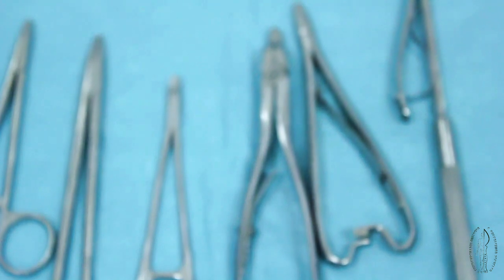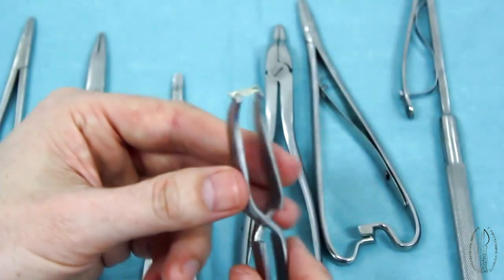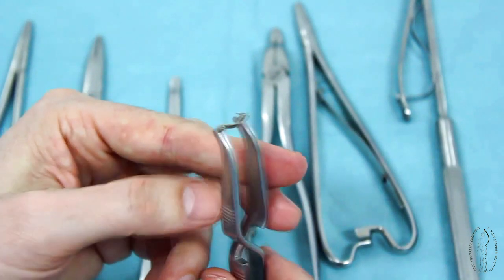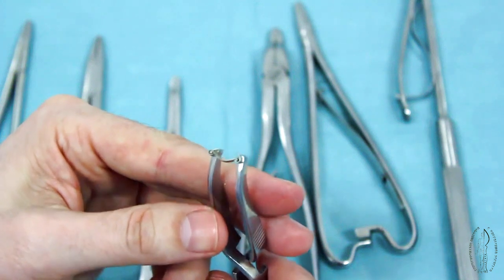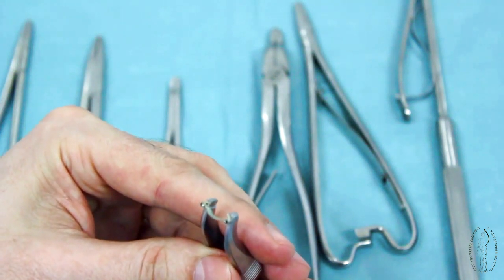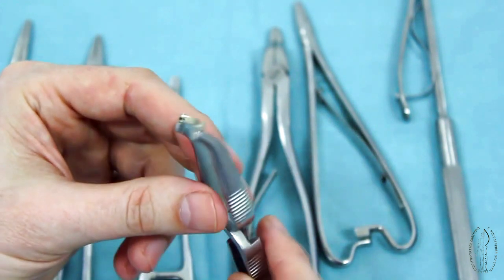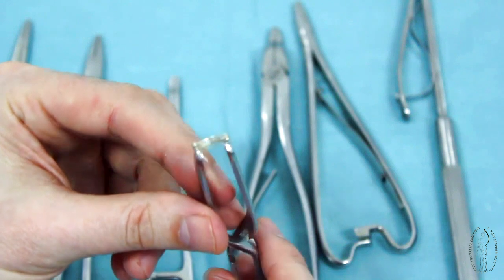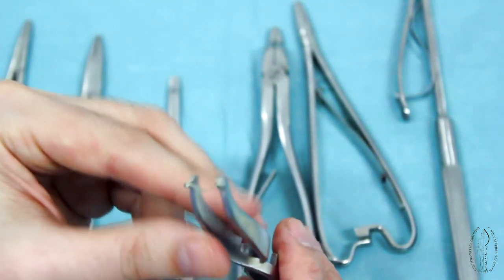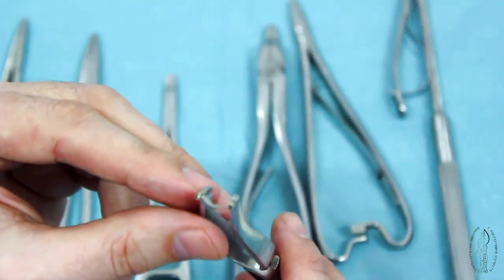Mitchell's stapler pincers is used for connection of skin incision by means of a metal agraph. This is the so-called bloodless method of tissue connection. Mitchell's agraph is a narrow plate on one side of which there are two sharp teeth penetrating only into the superficial layer of the skin, and on the other side there are two short channels for pincer spines.